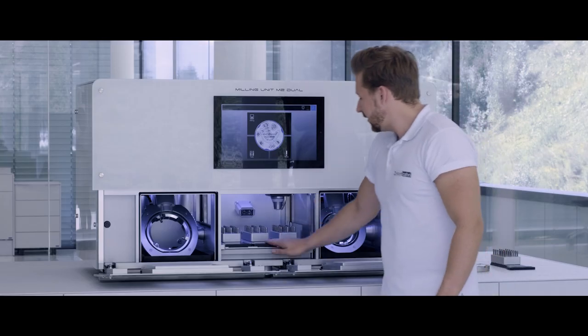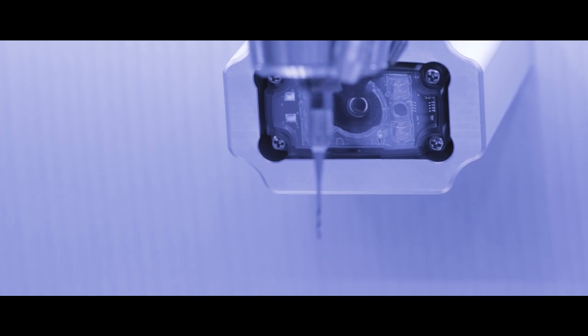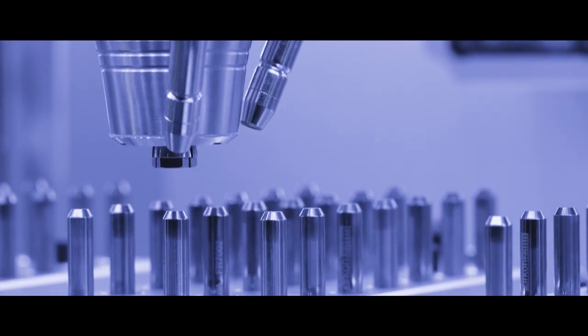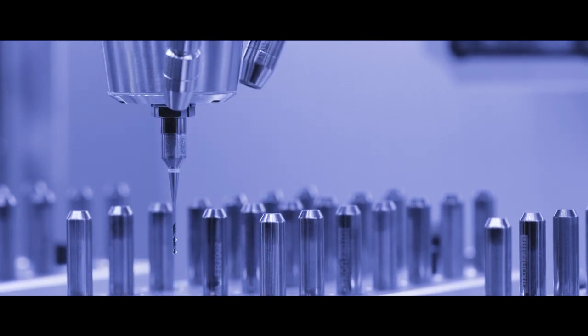In the middle chamber, we also integrated a small QR code scanner and QR code camera to read and scan new burrs. The advantage is that the software always knows exactly where each burr is located, so you avoid unusable milling results caused by an incorrectly placed burr.